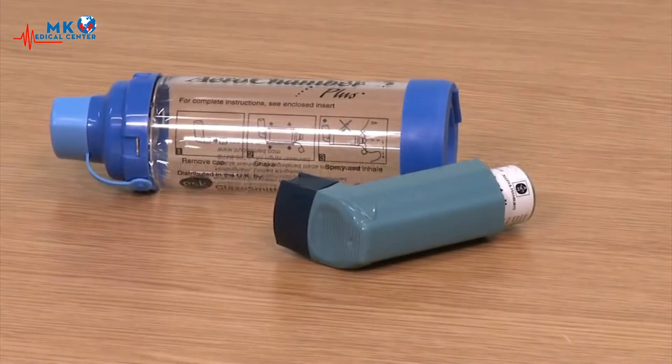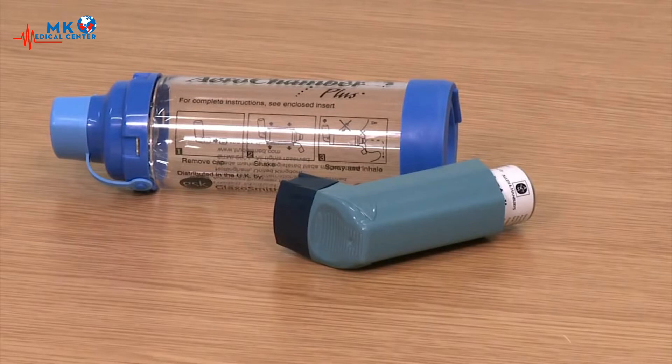Spacers, such as this aero chamber, reduce the need for coordination by holding the aerosolized medication within a chamber. They may be used with either a single breath or multiple breath technique.